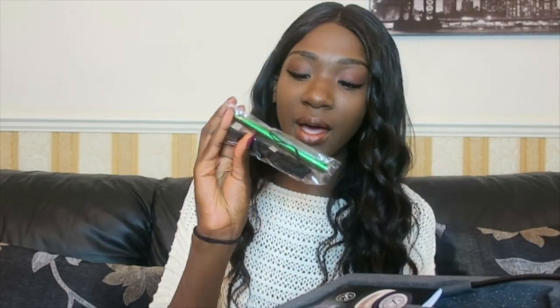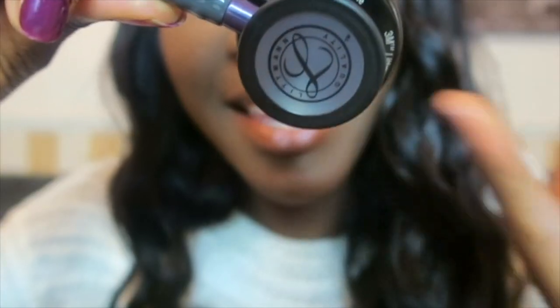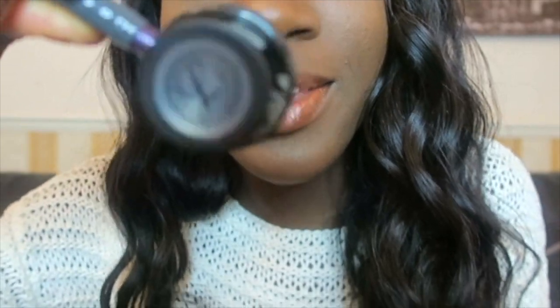They also put a pen with their logo which says Medisave on it. I'll take a photo of the box so you guys can see how it looked. It has a manual and it's written in different languages as well, which is handy.